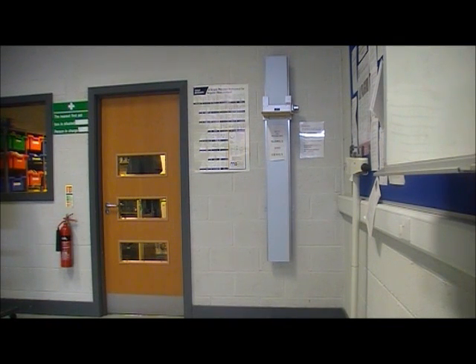Hi, this is a demo video for the Stadiometer in the Physiology Lab at Edge Hill Uni. First, ask the participant to remove their shoes.